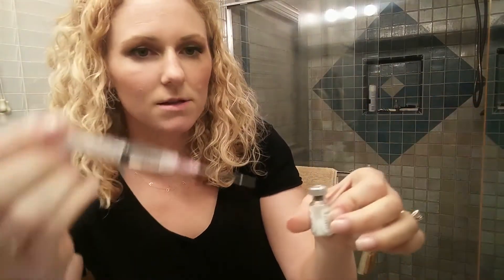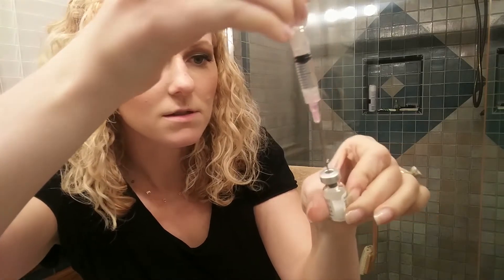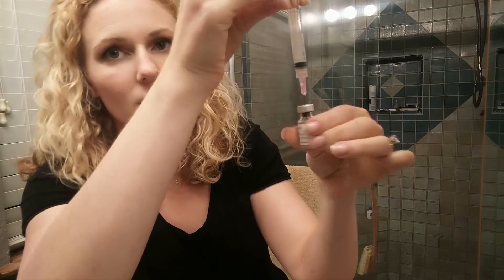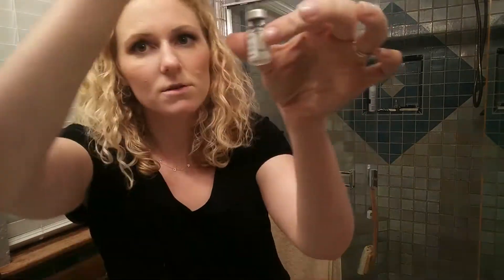Here's the powder — it's kind of cool, right when the liquid hits the powder it'll dissolve really fast. So here we go, in there. We went in there, now we're going to leave the needle in and gently swirl around. It's really, really clear like water — that's what you want.